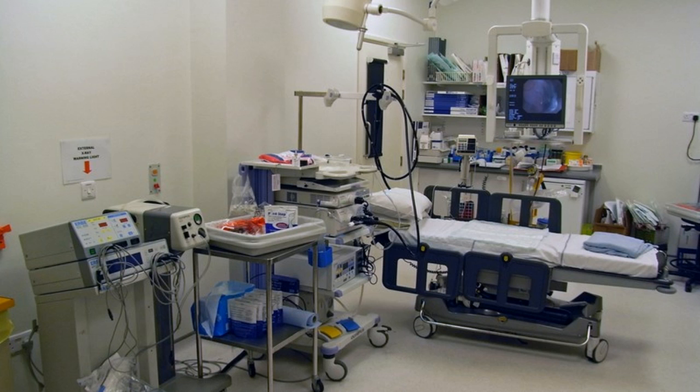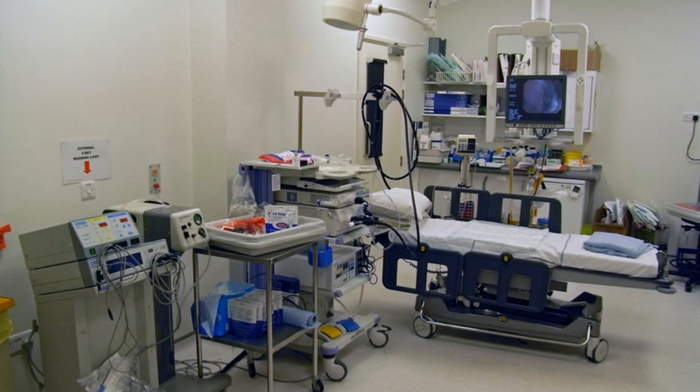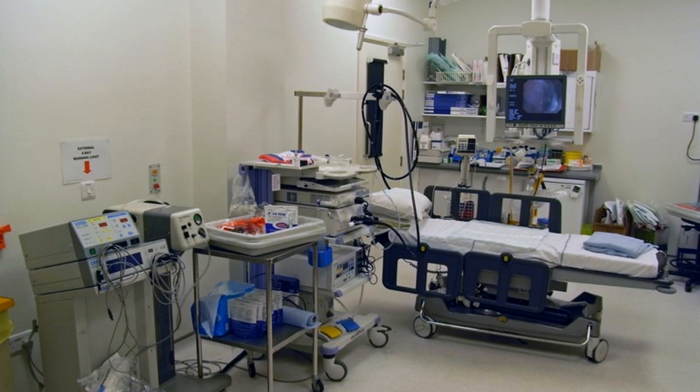It provides us with the actual appearance of anatomical structures, while in their normal and physiological phase, without being altered through biopsy or surgery.